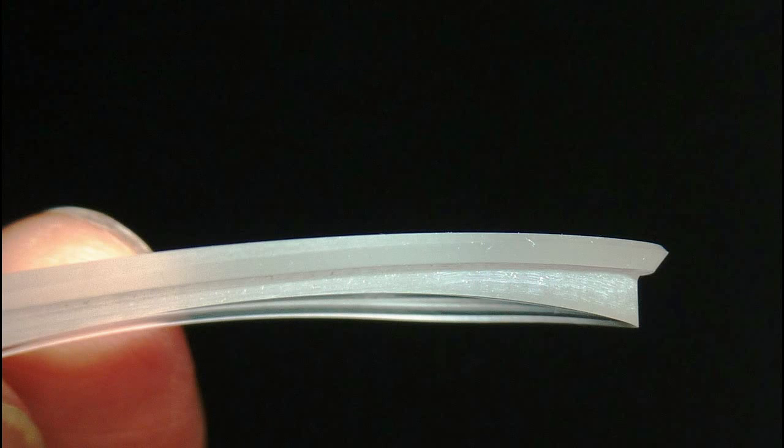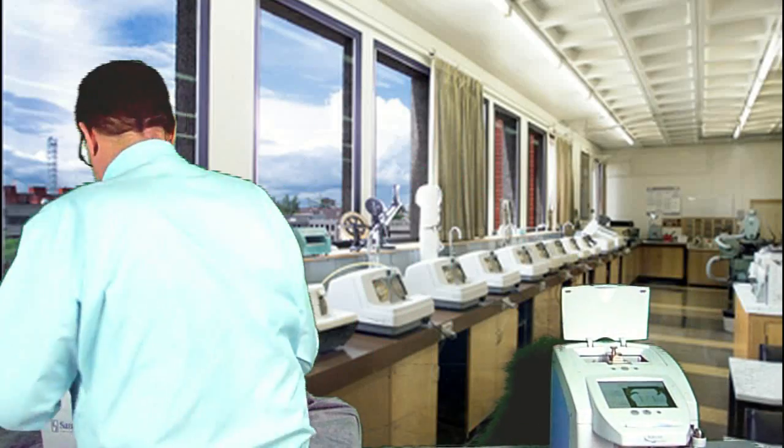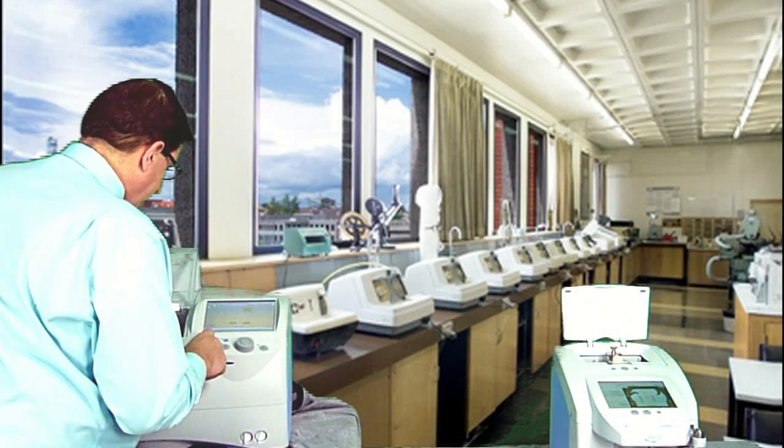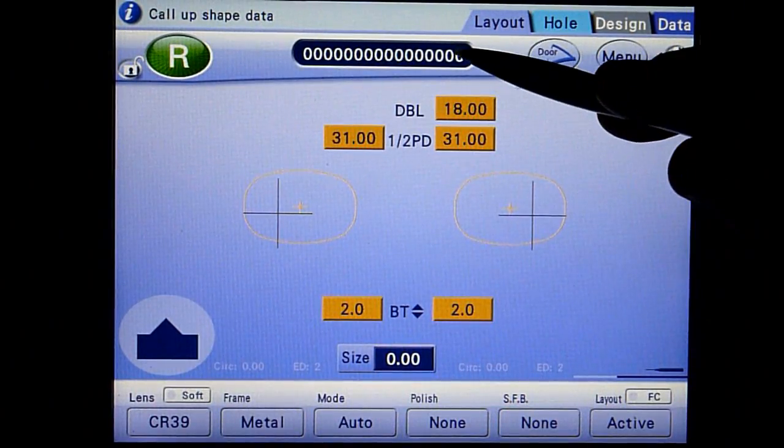To best fit a lower curved lens into a high curved frame like this, load a lens into the edger. Bring the shape up on the display.